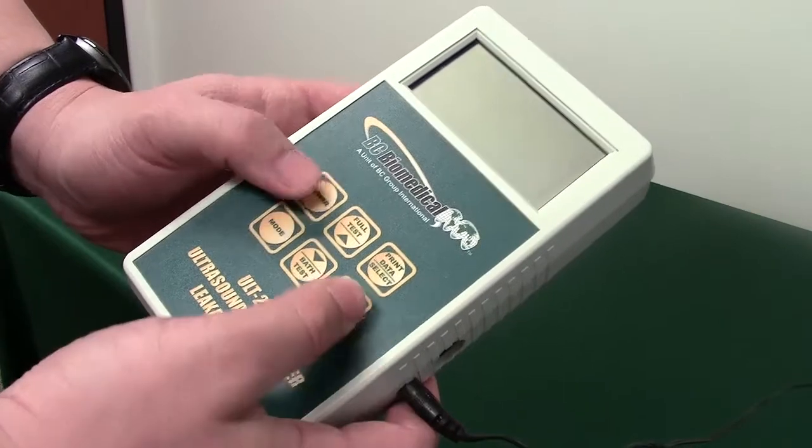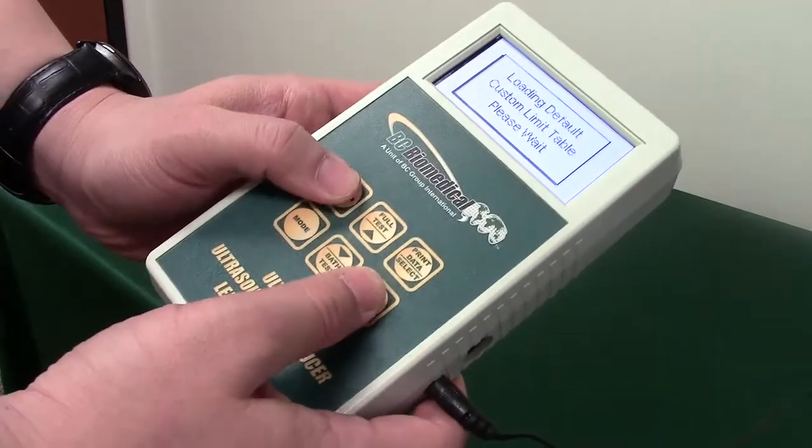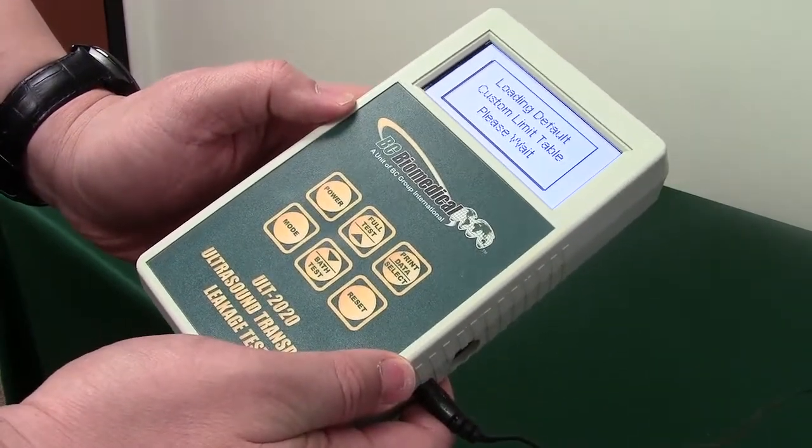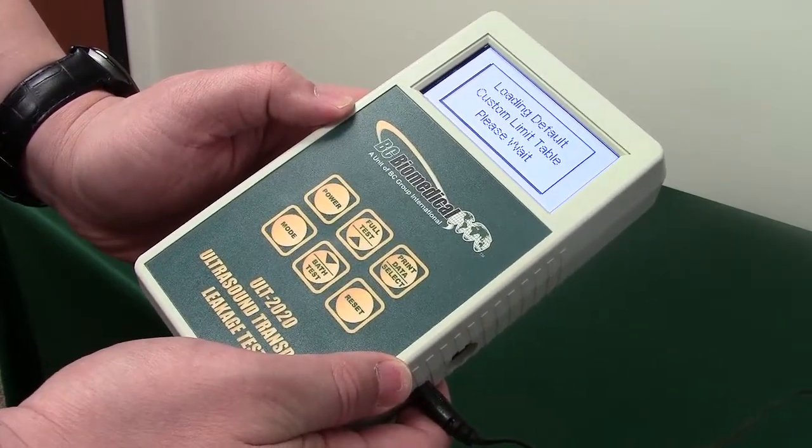Hold reset while turning on the ULT to reset your custom settings to factory settings.